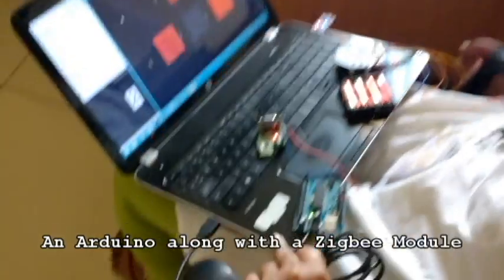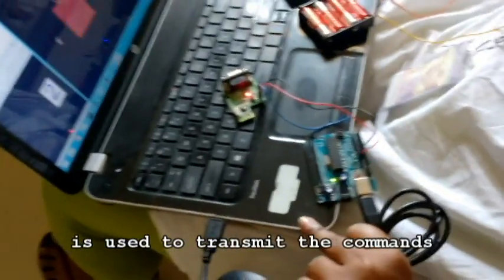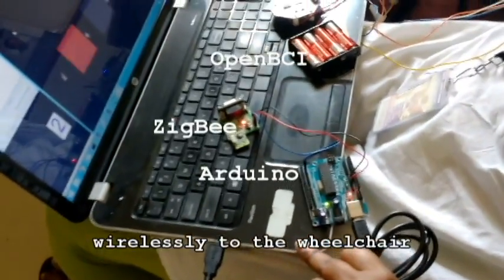An Arduino along with the ZigBee module is used to transmit the commands wirelessly to the wheelchair.